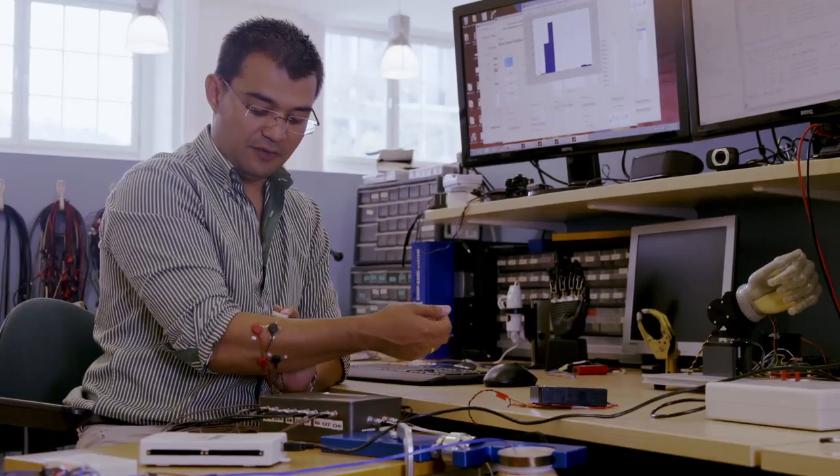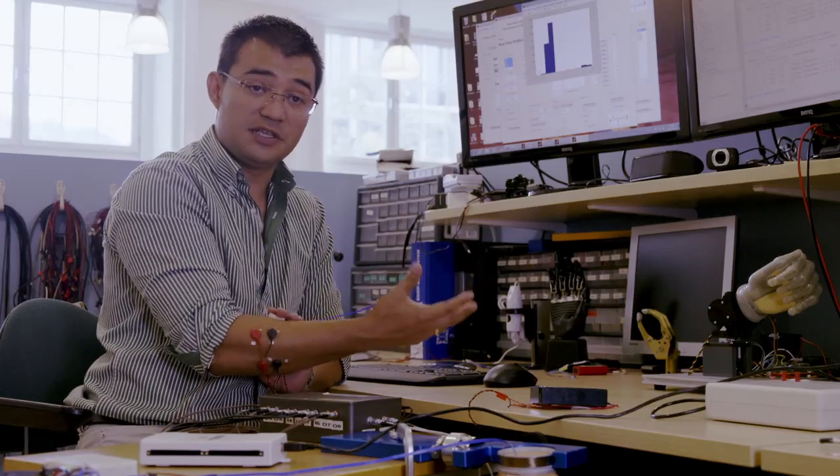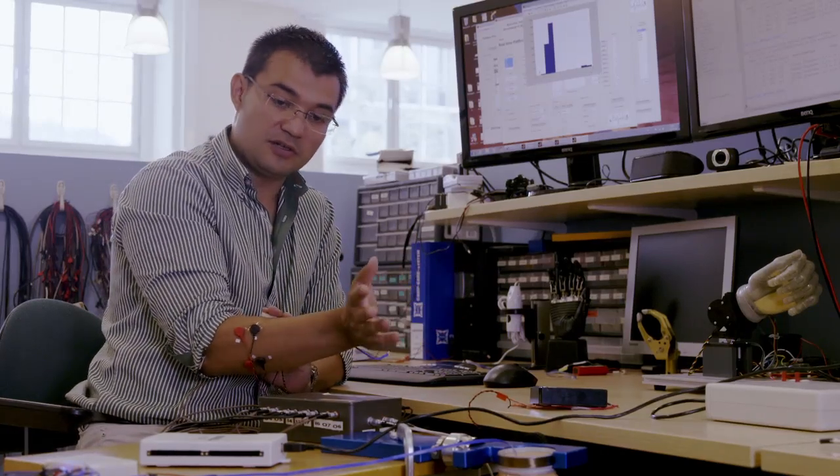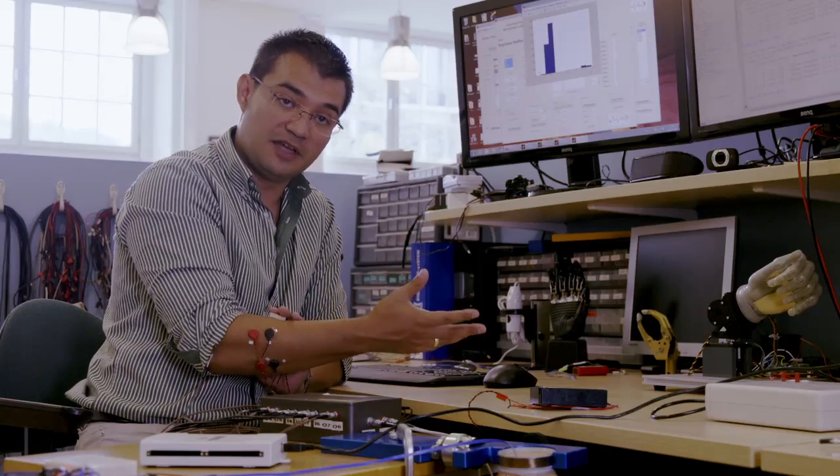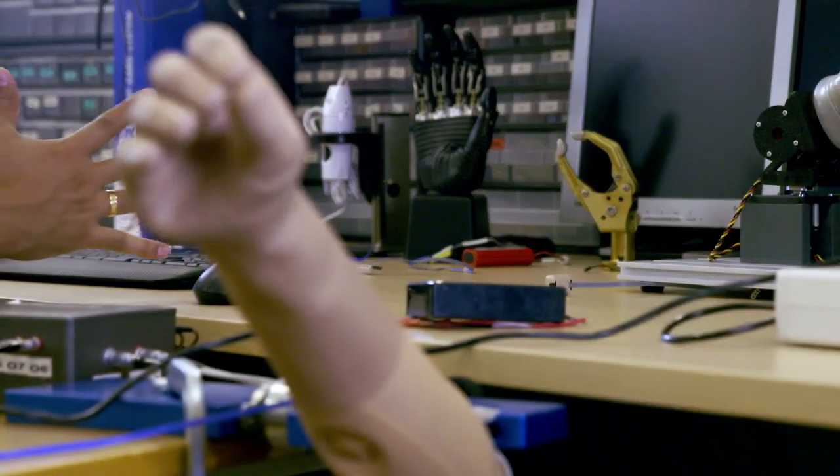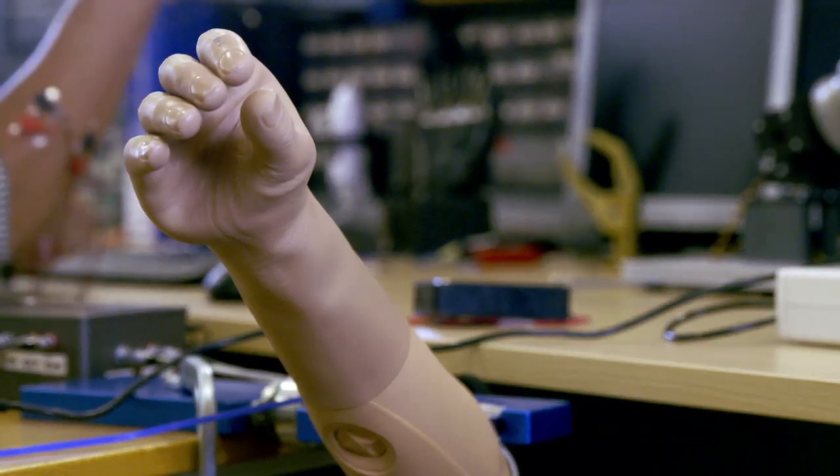The reliability of these electrodes, or the whole system actually, is very important because these are not toys. People use these devices to assist them on their activities of their daily living. That's why we're doing this, because we want the control to be more intuitive.